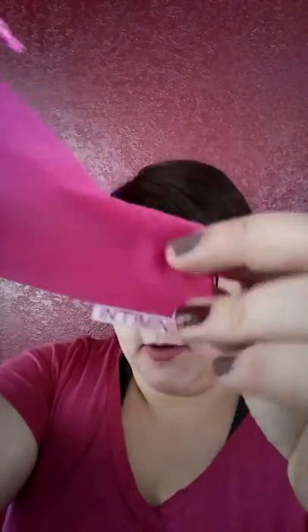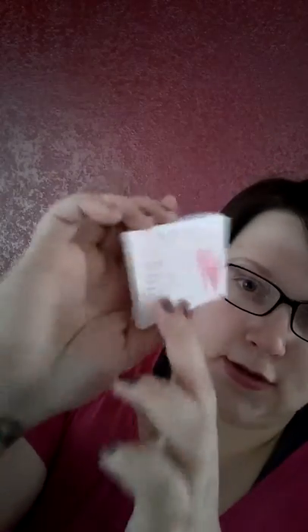The bag is awesome — stretchy four-way stretch, it's like swimsuit material. It does have a name on it. And it comes with a user manual that is literally like a little book — it's got a spine and everything. It shows how to fold, how to sterilize, and it has instructions in different languages, with English right at the beginning. It shows insertion techniques and everything, which is really cool.